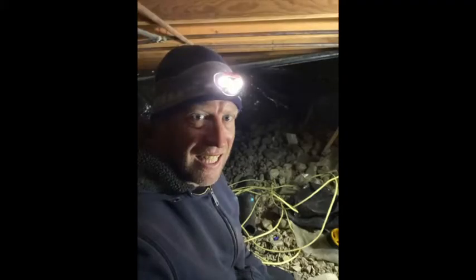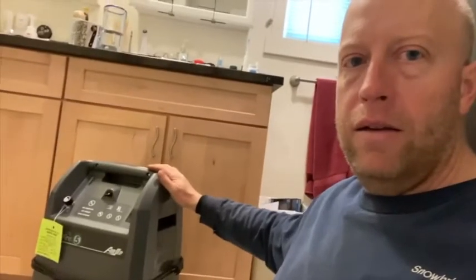I've spent the last few days getting this installed. I like doing things myself — a friend had some extra wire, an outlet box, and a GFCI. It was just a matter of using my time to get it installed, which is going to help me recover and make me stronger. That's the whole point of the oxygen concentrator — to give myself the best chance of healing all around.